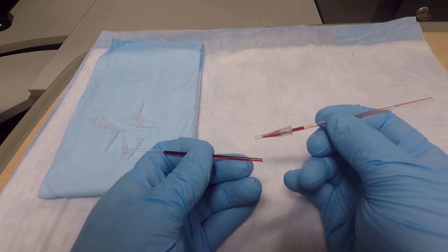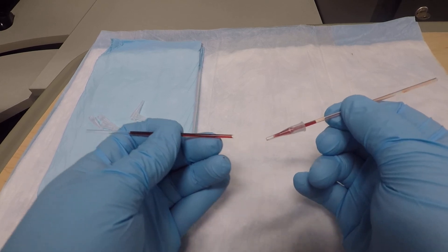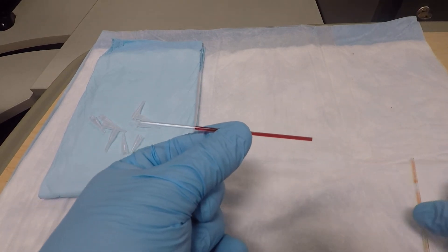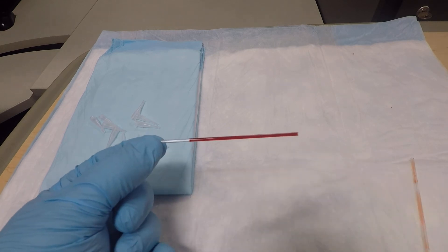These clot catchers will catch microclots as well as larger clots. So that's the sample you're left with. Now you can go ahead and run the sample.